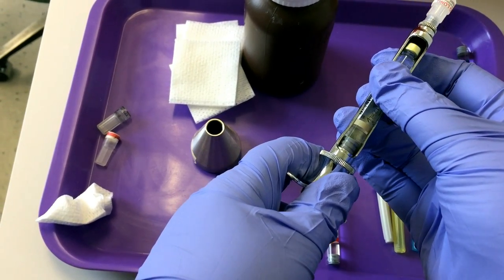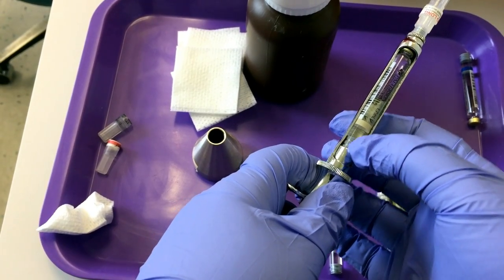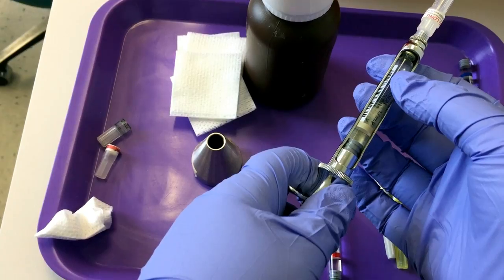Lay it down flat, keep your thumb on top, and slowly let this metal cylinder, the piston, push it up so that the stylus punctures that diaphragm.